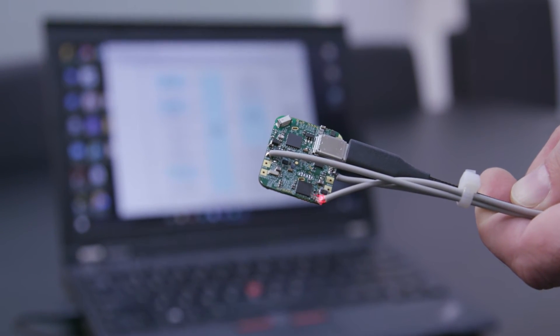The board can operate either in tethered mode, powered from USB, tethered to a PC. The GUI that operates the platform is downloaded from the Maxim website. The cables and all the electrodes are provided in the kit.